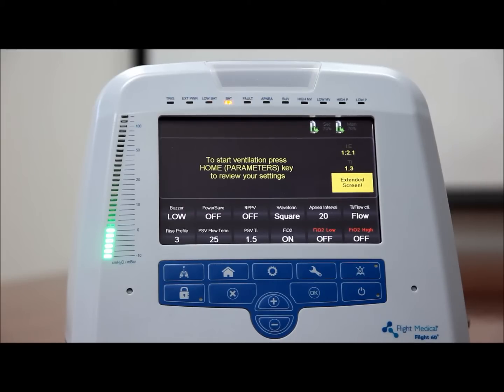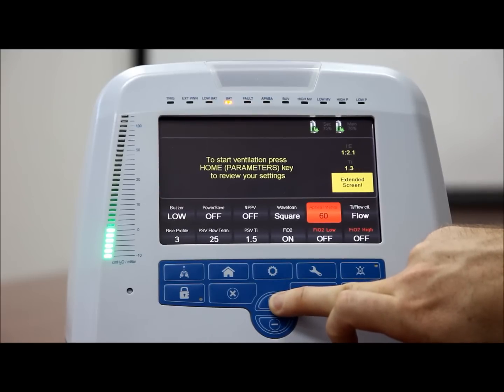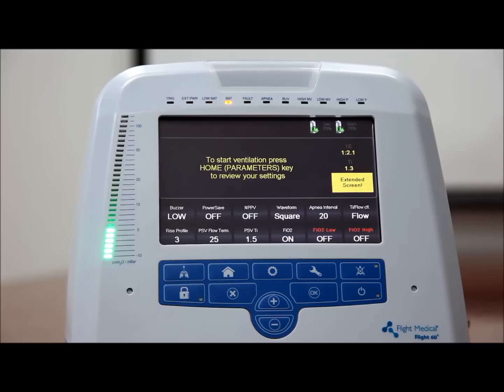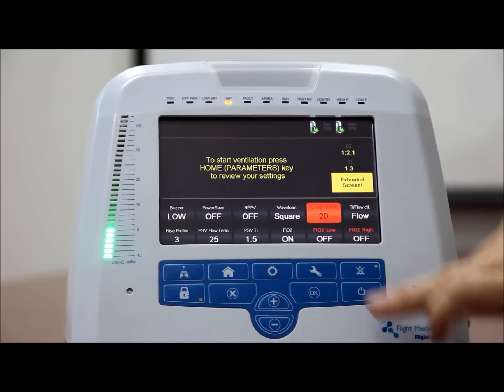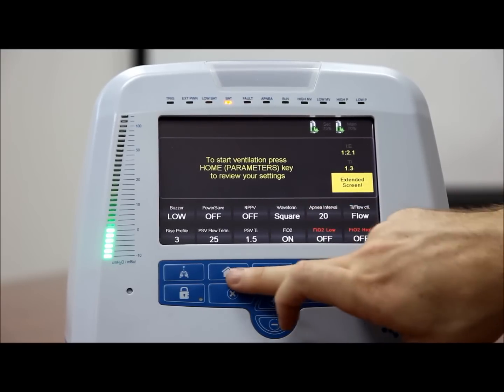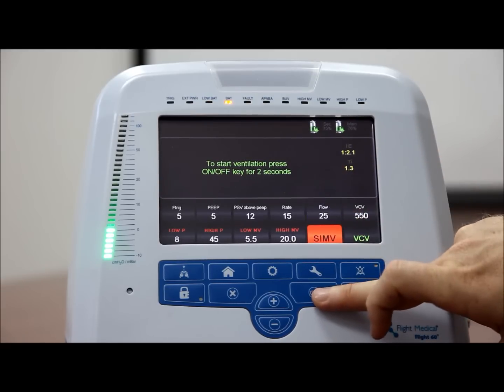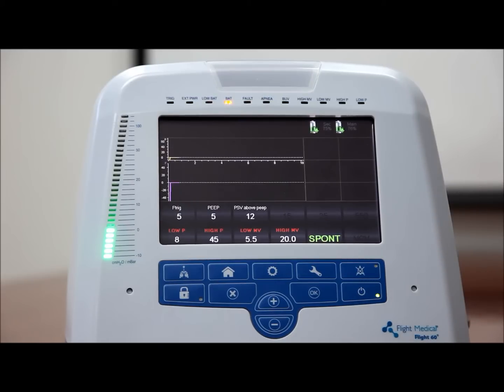Apnea. You can set apnea alarm limits. This can be between 10 and 60 seconds. To define the apnea alarm limits, on the ventilator front panel, press the extended button. Tap the apnea control button. Press the plus/minus button to increase or decrease the value of the apnea. If the patient apnea time is longer than the set value, the apnea alarm sets off and the backup ventilation is activated.